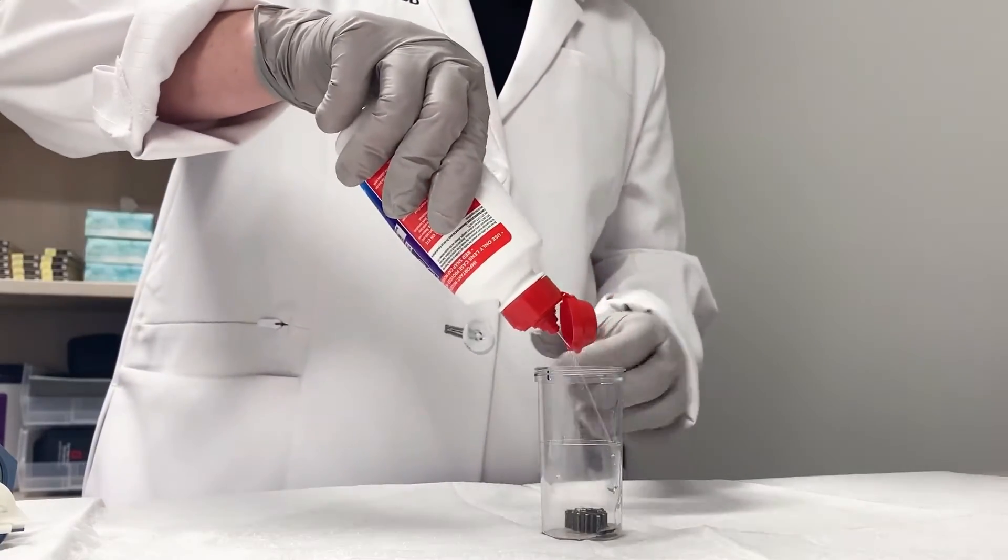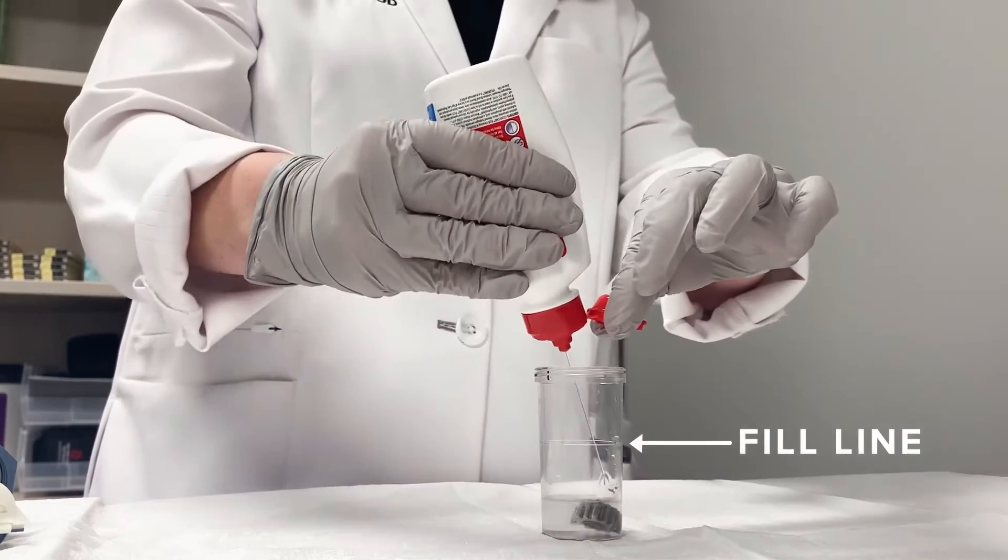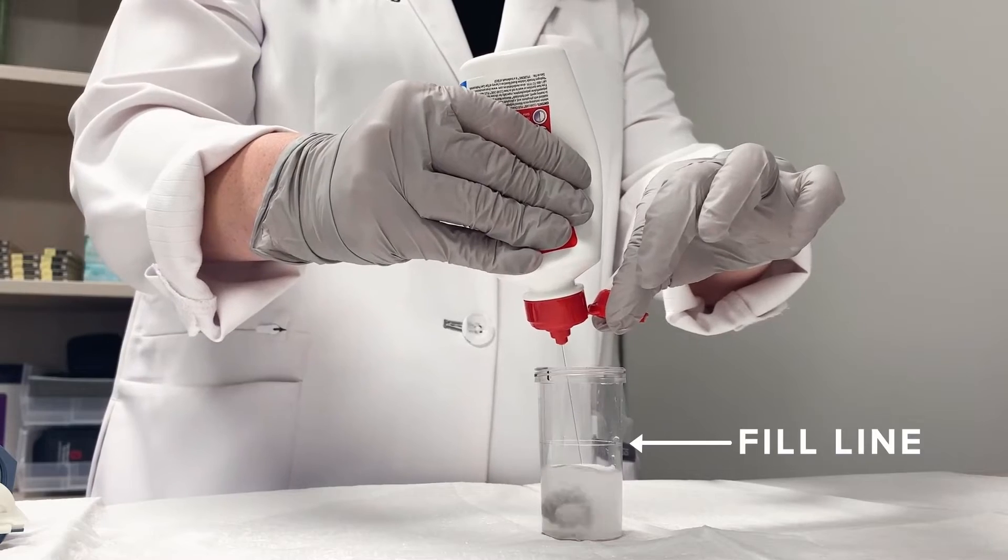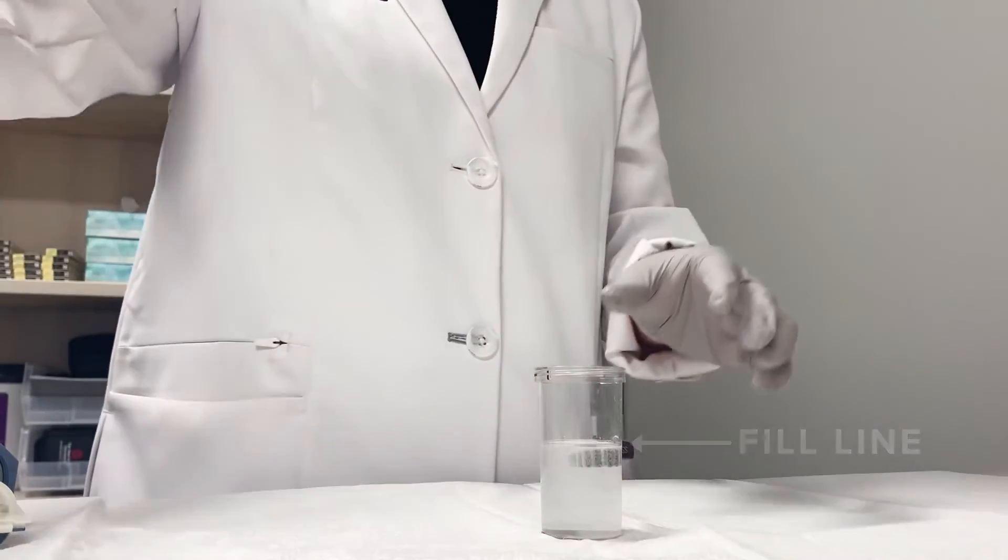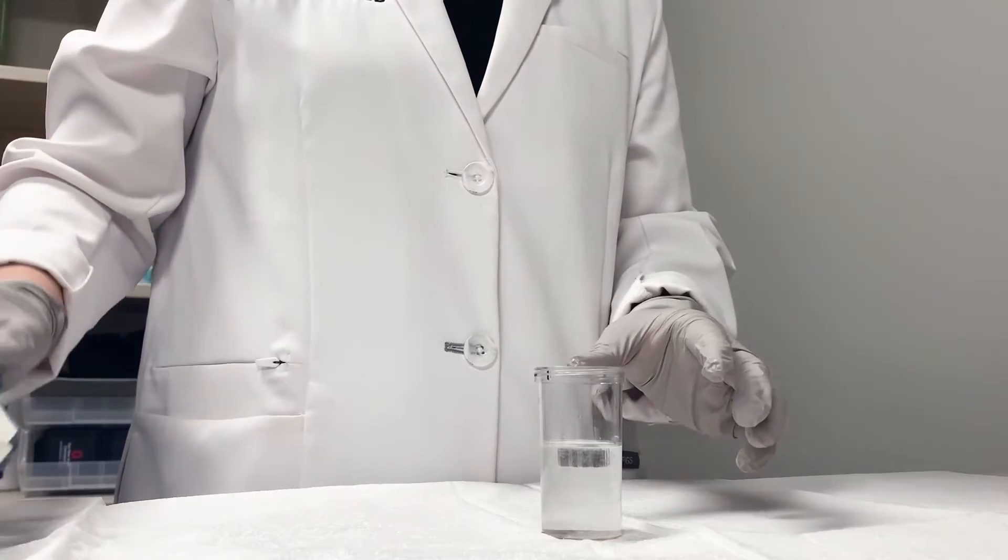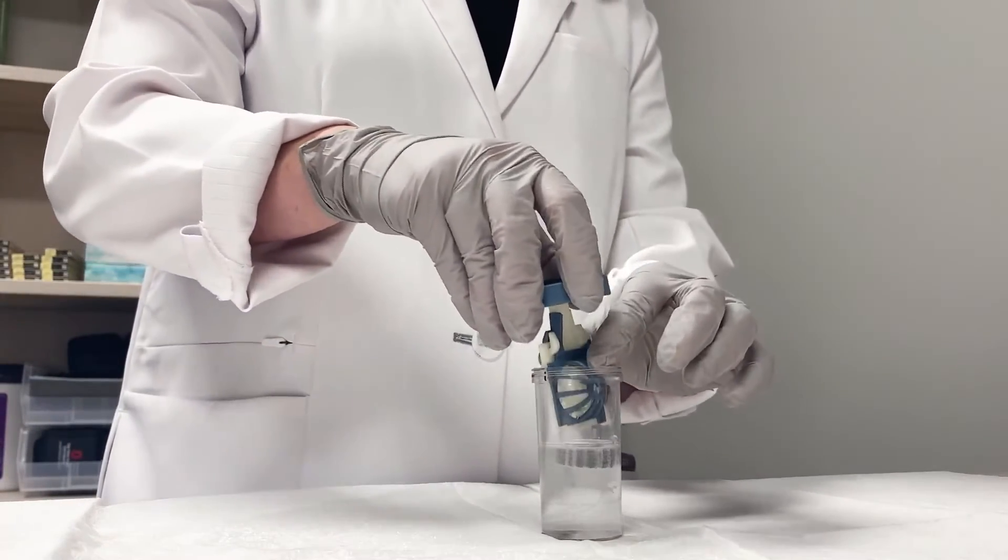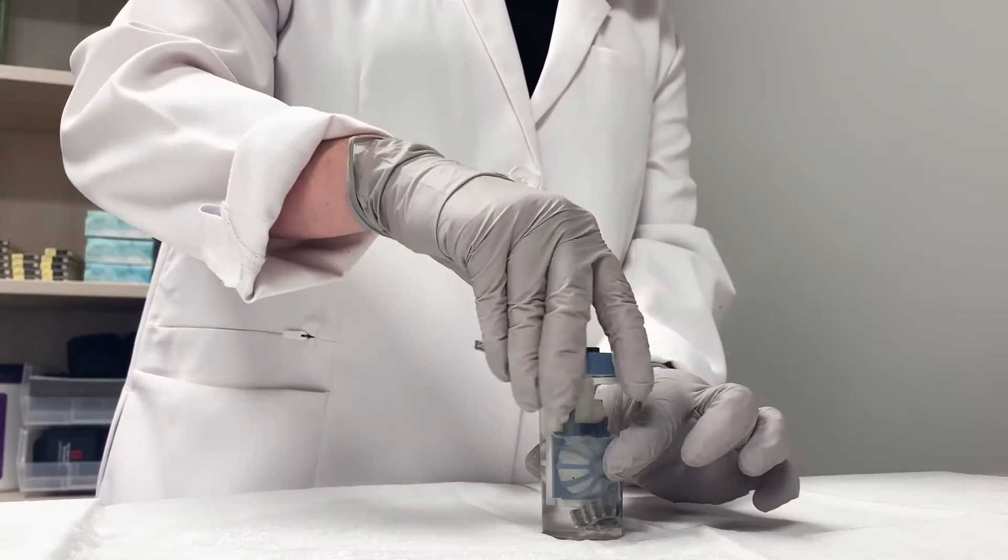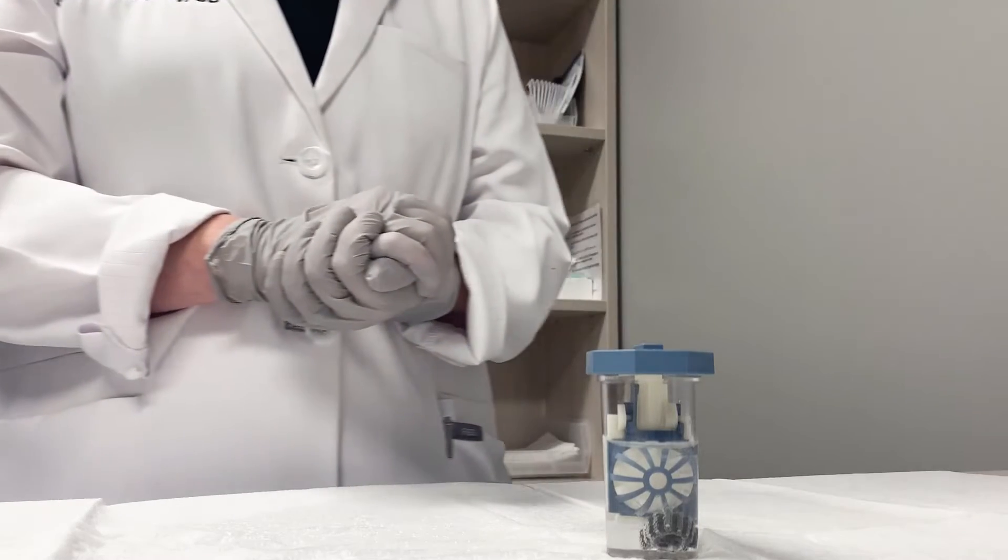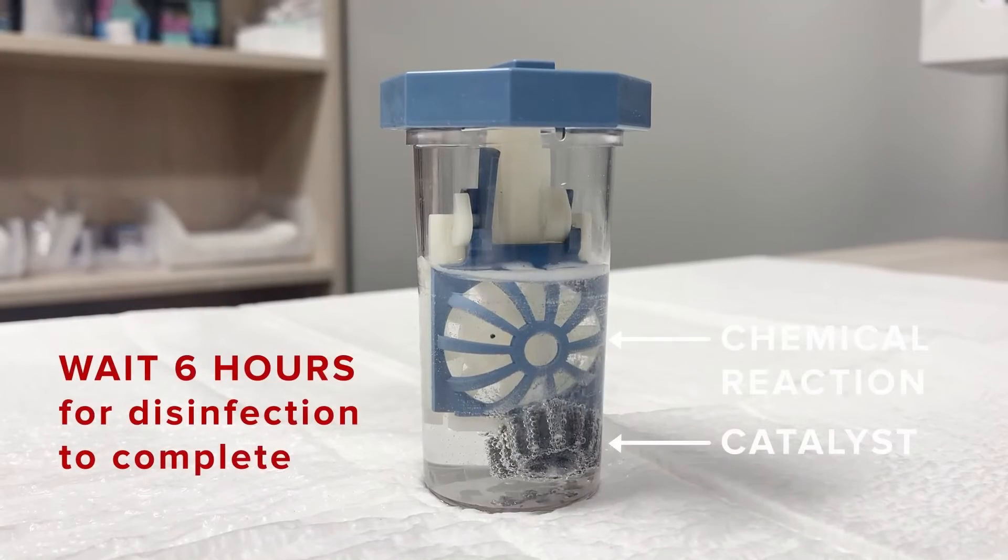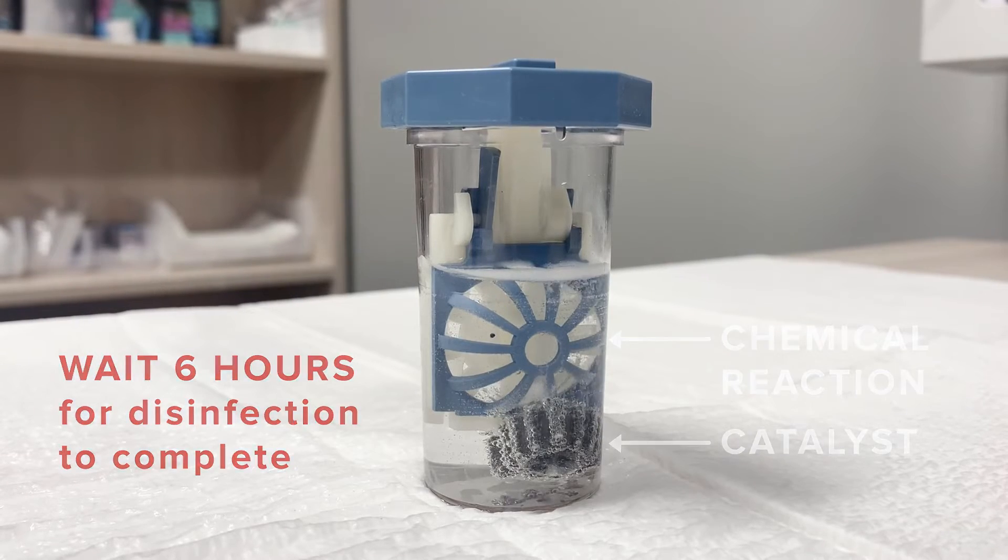You will then fill to the fill line with the clear care solution. After filling, gently place the lens into the case where it will sit for a minimum of six hours before removing. And remember, do not rinse the lens case or the device with tap water.